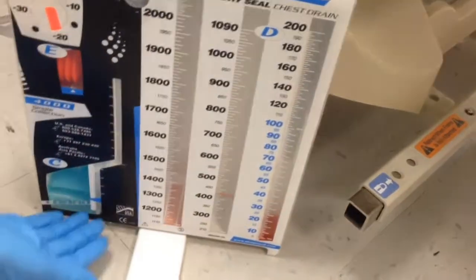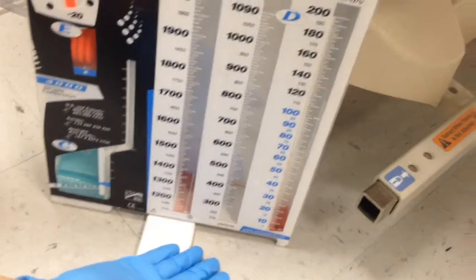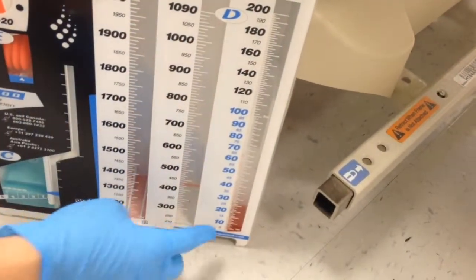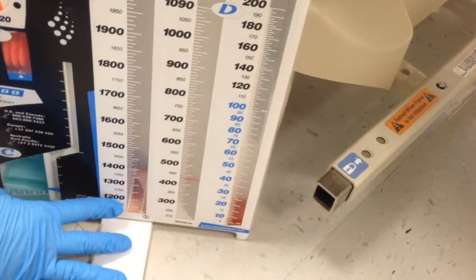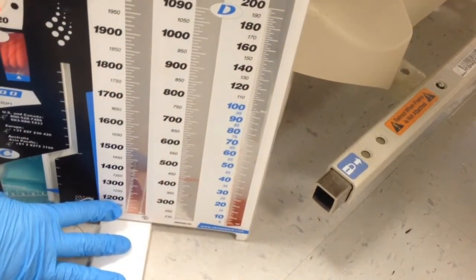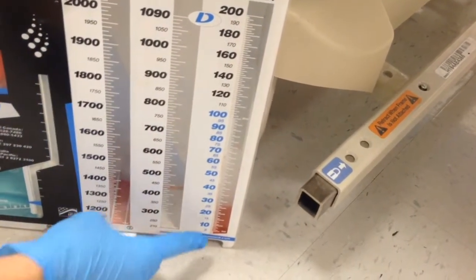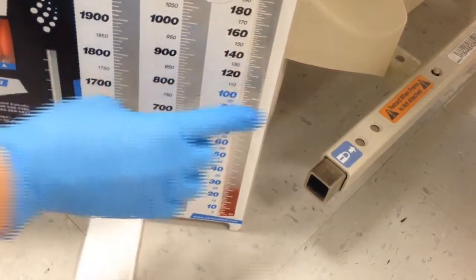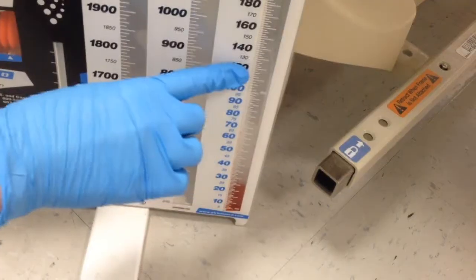There's no breath right now because it's a mannequin, not a human. For the drainage system, this is where the drainage collects — you never empty this. It's a continuous collection of drainage. With each shift you'll mark it with tape or a marker, noting the time and date at the level it is when you end your shift.